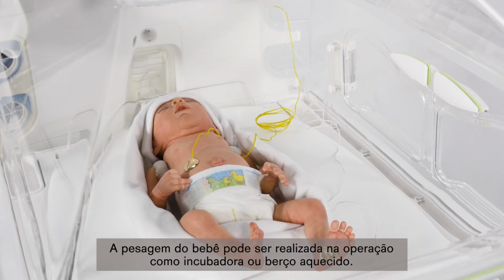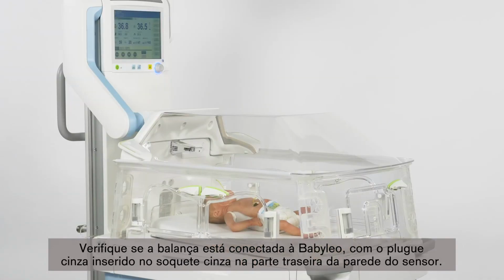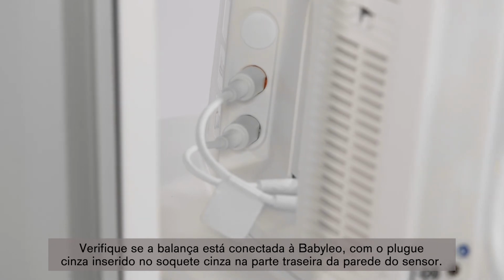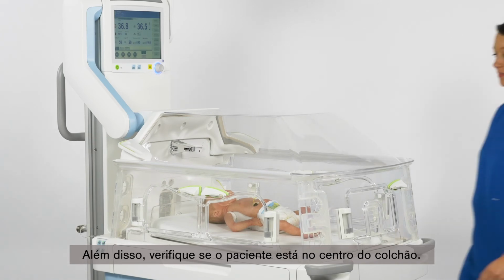Weighing of the baby can be done in both Incubator Operation and Radiant Warmer Operation. The scale is integrated in the bed support. Check that the scale is connected to baby Leo with a grey plug inserted into the grey socket at the rear of the sensor wall. Also, check that the patient is lying on the centre of the mattress.